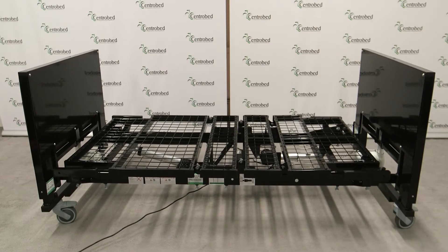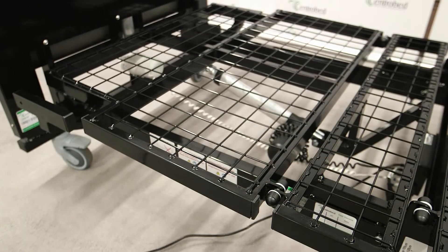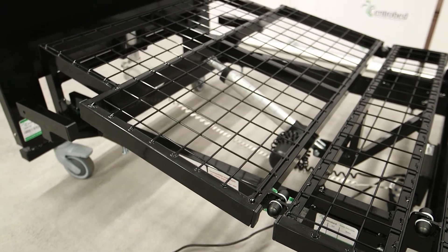It comes as a profiling, twin system, or single action. We also adjust the start height, so you can stop it and make it much lower than normal.